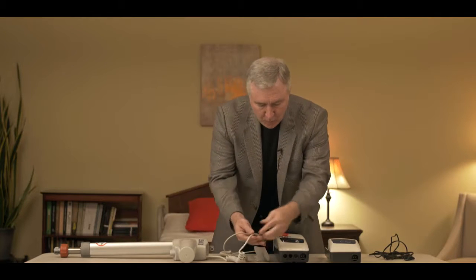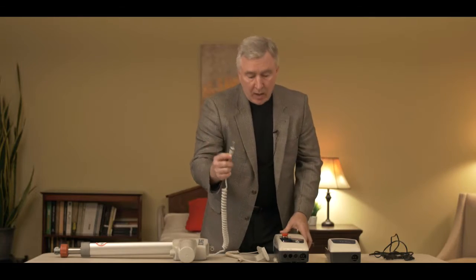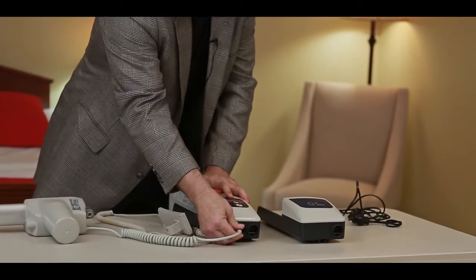If you have a brand new lift and can't get it to run straight out of the box, the two things to check right off the bat are: does the battery connect properly to show that you have power, and is the actuator cable plugged into the control box properly and snugly? There are many times where the actuator cable isn't plugged in all the way and nothing will work on your lift — so that is an important thing to check when assembling your lift.